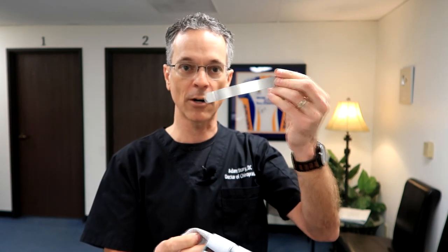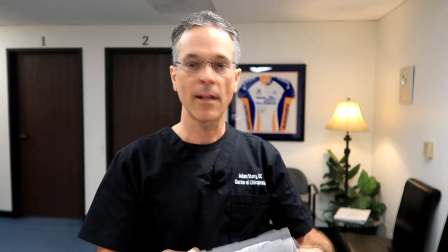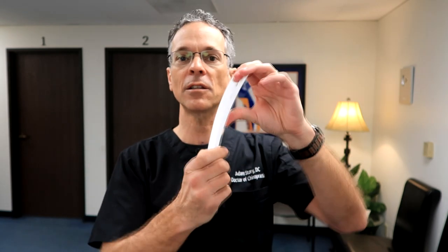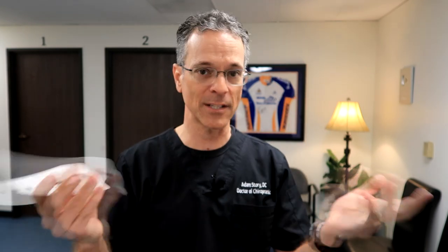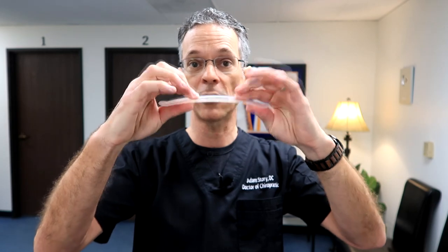Right in the center, and on the sides it has some metal pieces — again, excellent support. For some people that's just too much support, so they also come with plastic ones. Same type of structure — it supports a normal healthy lumbar curve, but it's a little more pliable and flexible because it's made of plastic. How do you choose? The more instability a person has, the more support they need. If I want a patient to have a tremendous amount of support, I'll put the metal in; if not, I'll use the plastic. The side pieces in the quadratus lumborum area also have a plastic option instead of metal for more pliability.